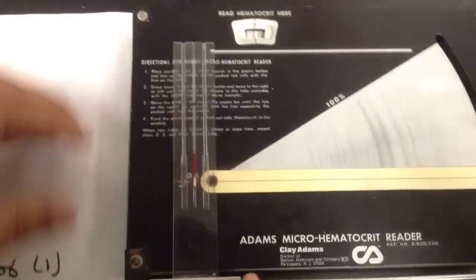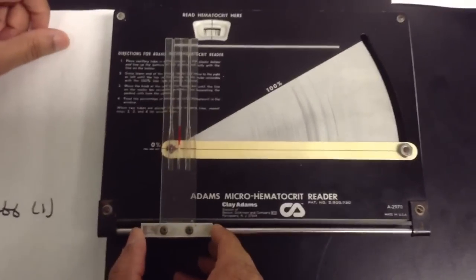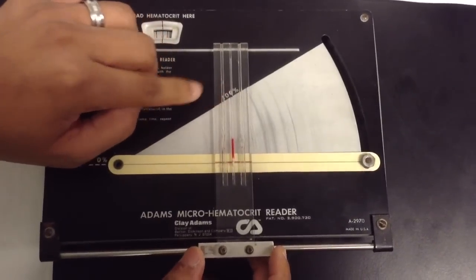Now you align it, you move this all the way until this part touches the 100% line.